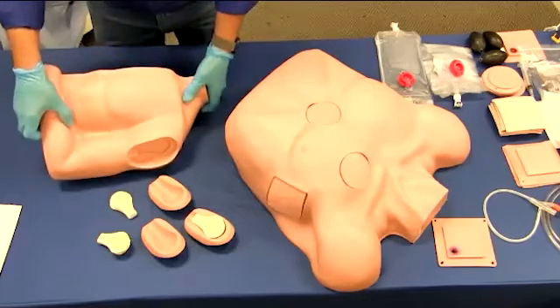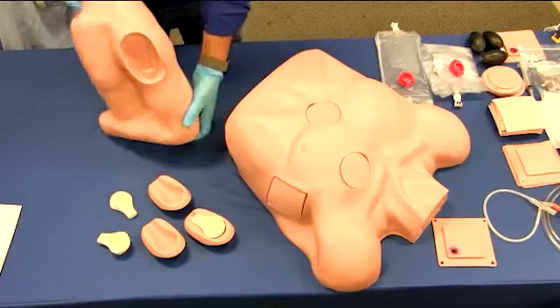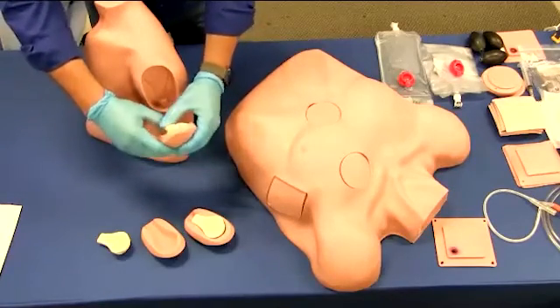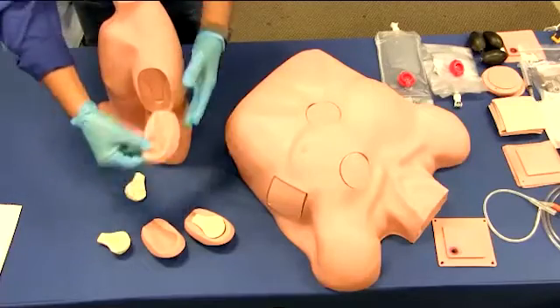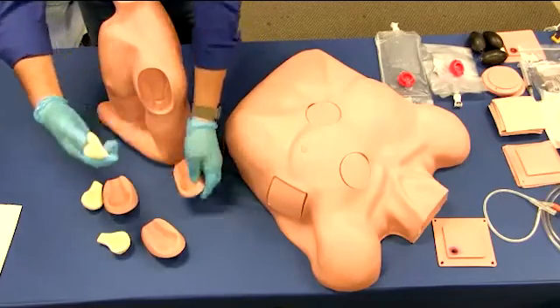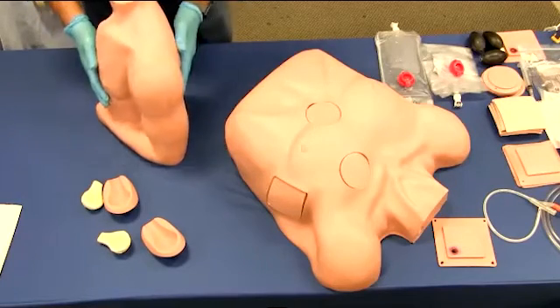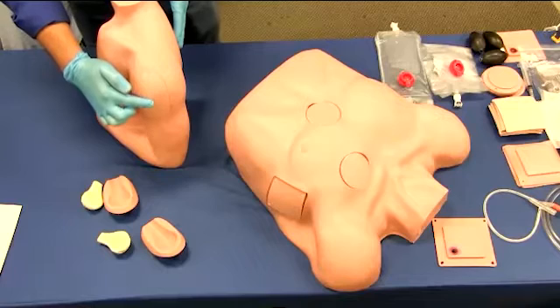on the side, or the back. This trainer is simple to use with an easy-to-access replacement bone section and injection pad cover to support training while presenting the realism needed to make training effective. Simply remove the injection pad cover and bone, then install the replacement bone into the socket and place the injection pad cover over the bone. Drilling with the intraosseous device will vary by manufacturer; however, this trainer will accept most devices.